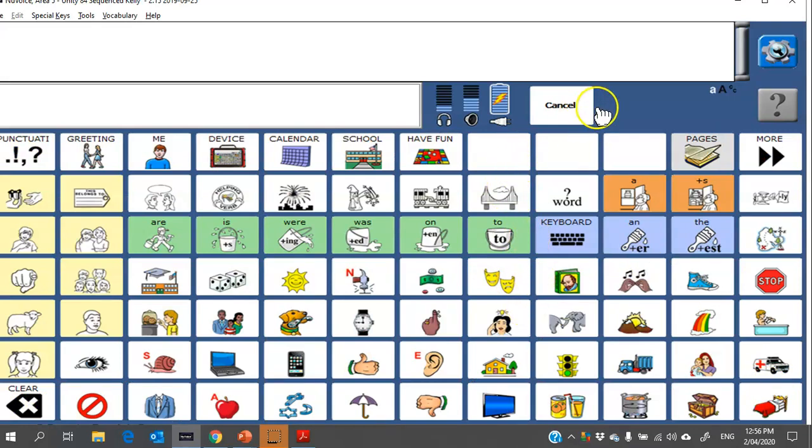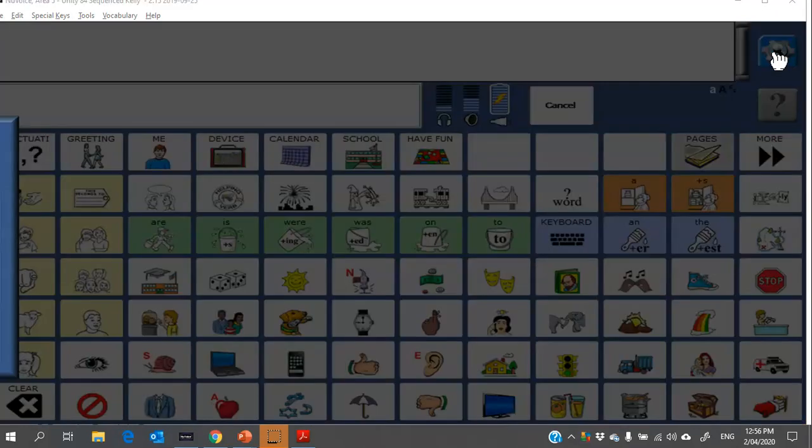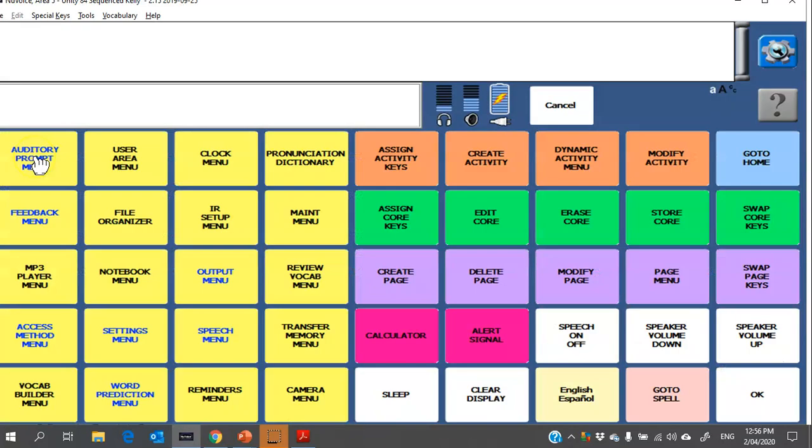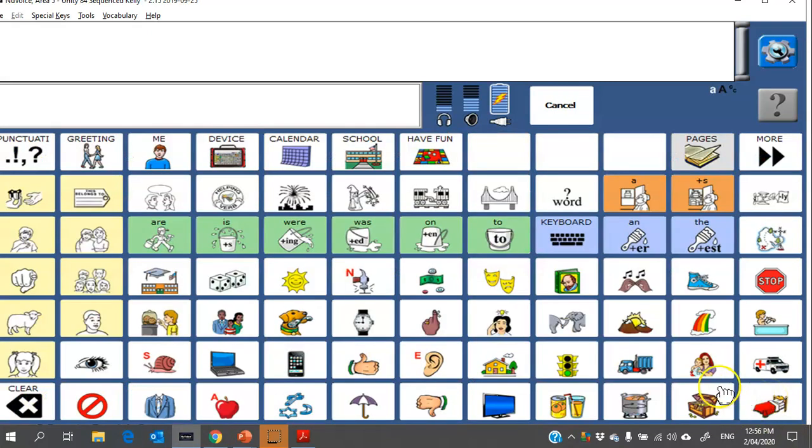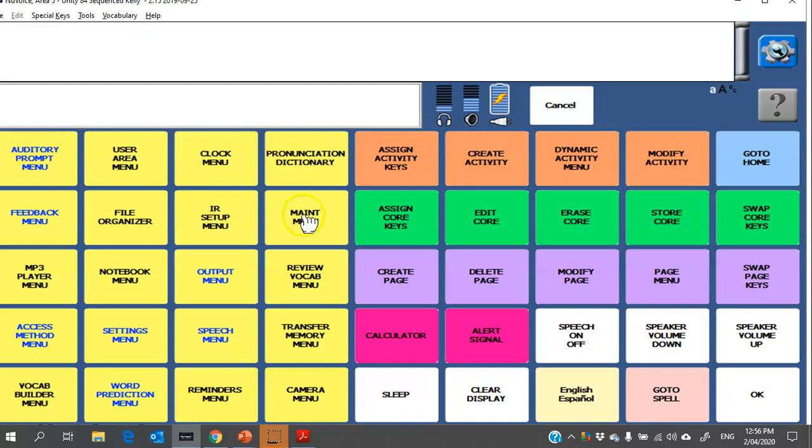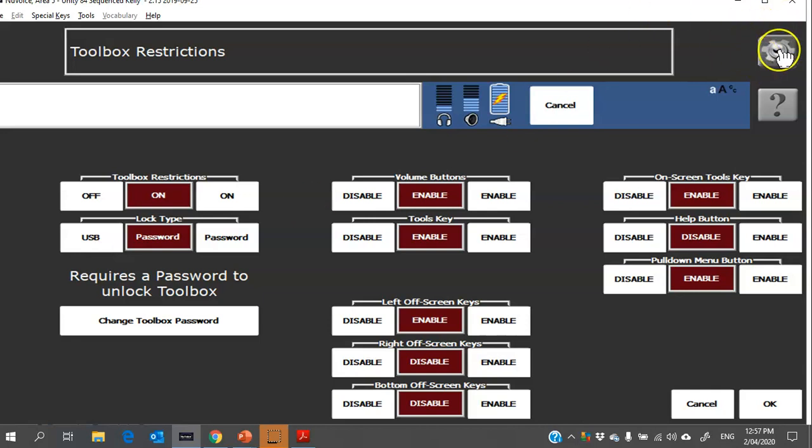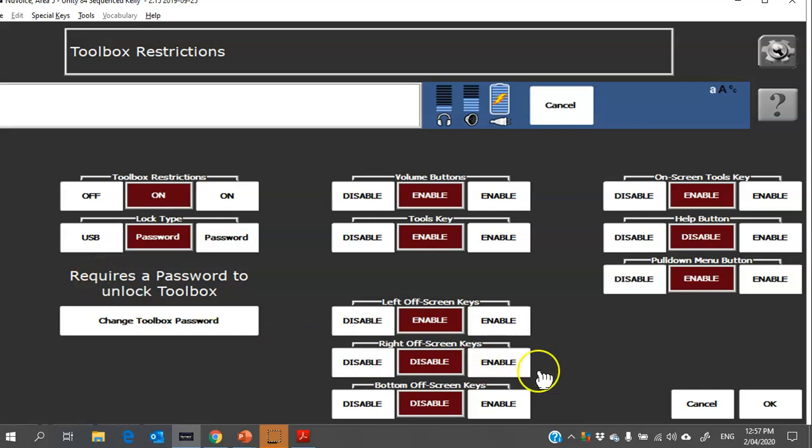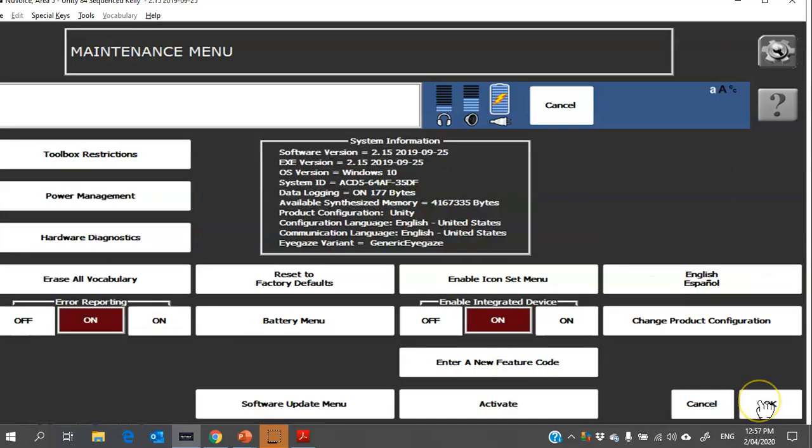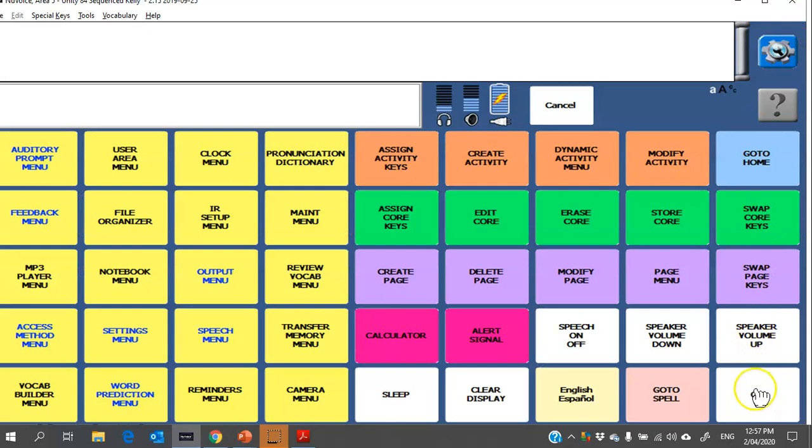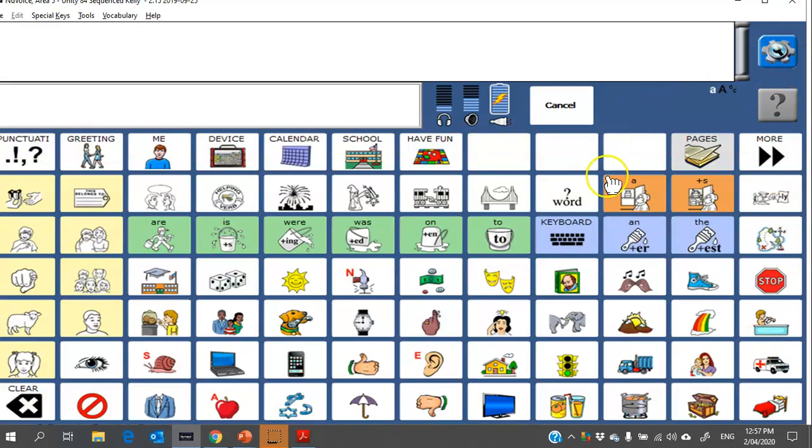Now you can hand the device over to the individual. If they happen to click up here and go onto toolbox, it will actually pop up on the device with the keyboard and then you would be required to enter in the password in order to access the toolbox. OK. The other way that you can do it under maintenance menu toolbox restrictions is you can set it up to only be unlocked when you plug in a USB stick. And that USB stick needs to be loaded with a special override tool. So if you think that even having that little toolbox button up there is going to be distracting to the person or the keyboard popping up to enter the password is going to be distracting, then let us know and we can help you load up a USB with the toolbox override on there so that that will mean this toolbox button won't be accessible at all, only when you plug in that particular USB stick.